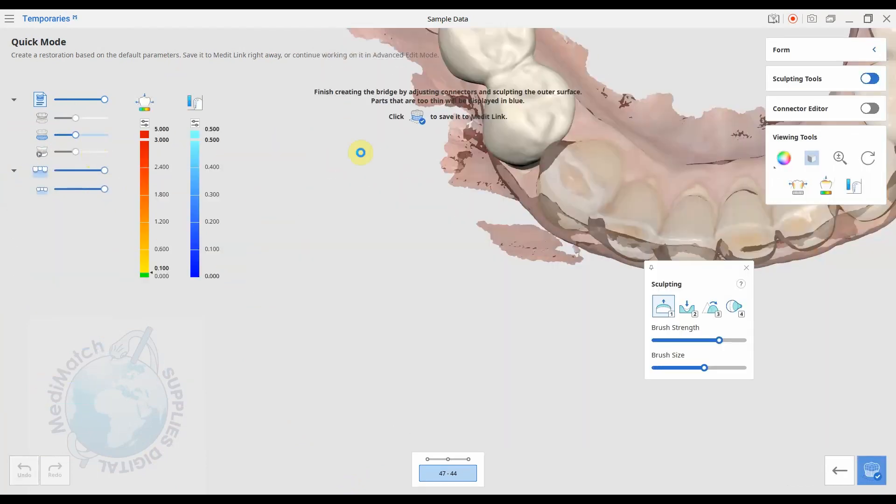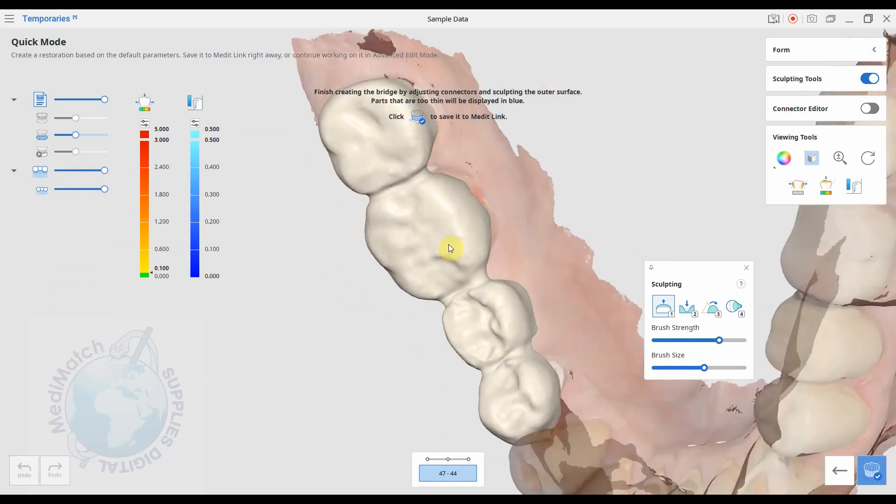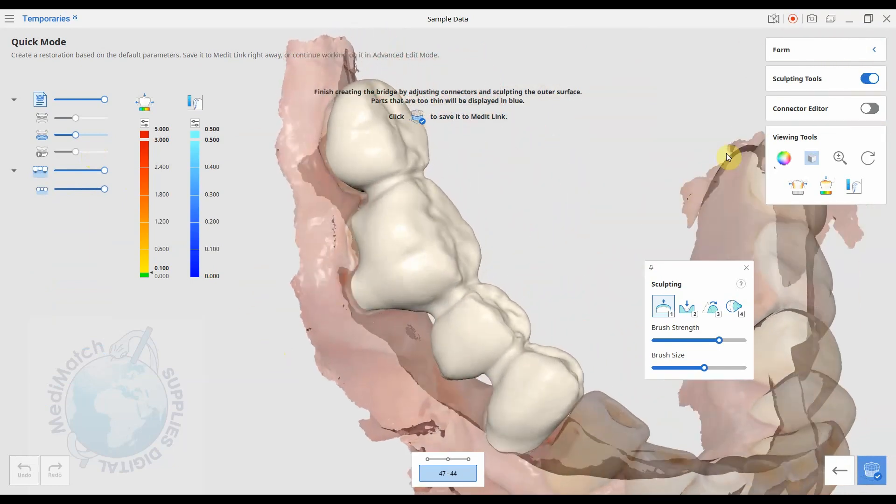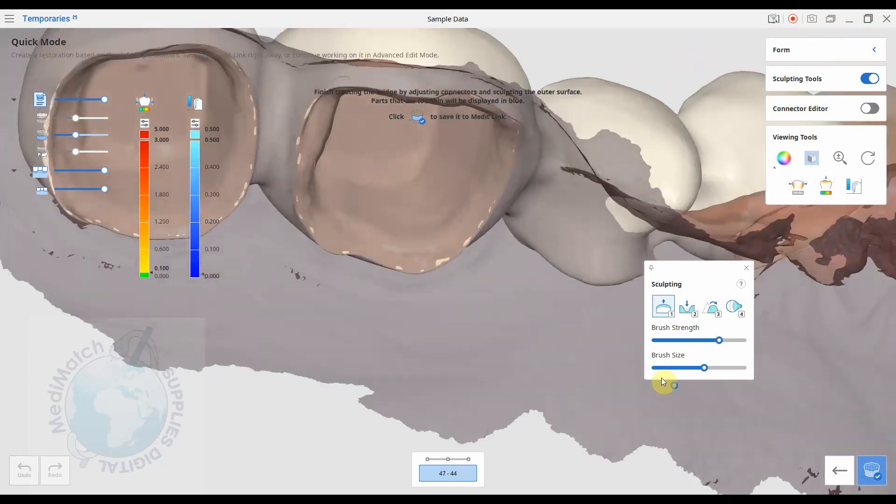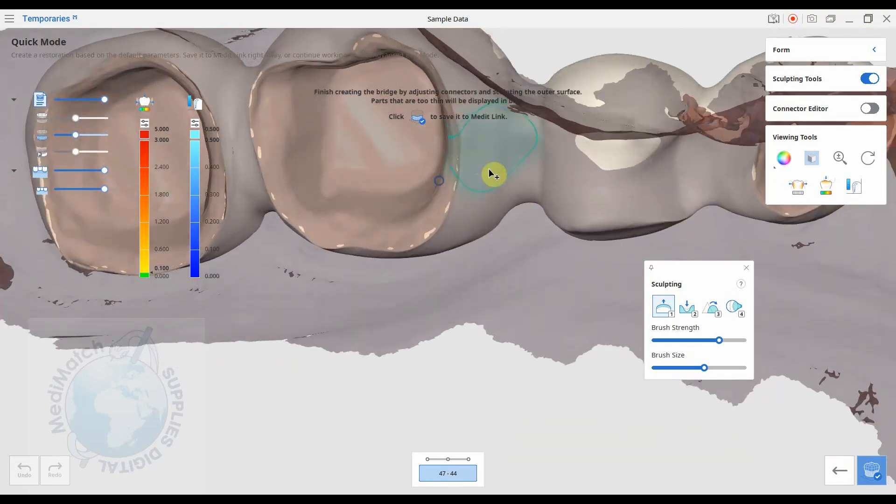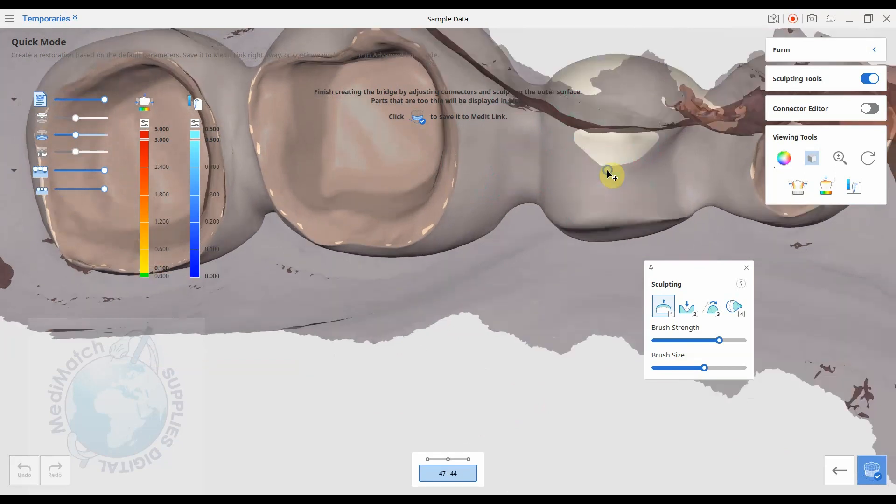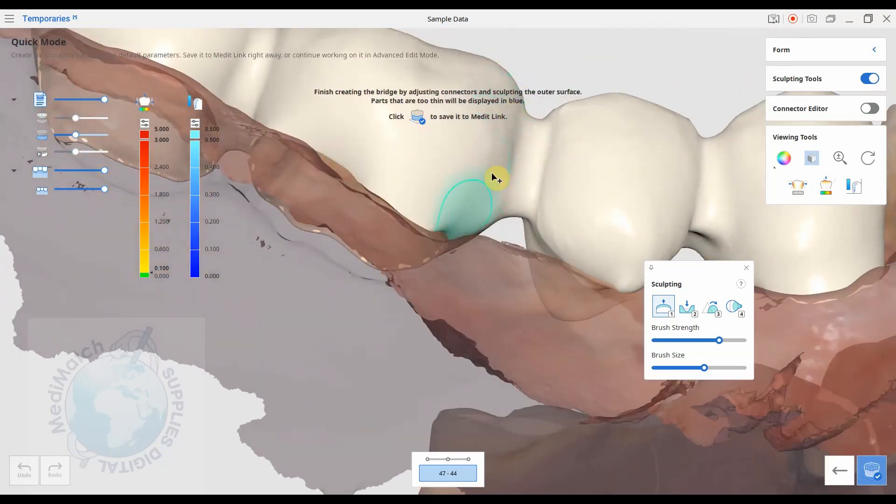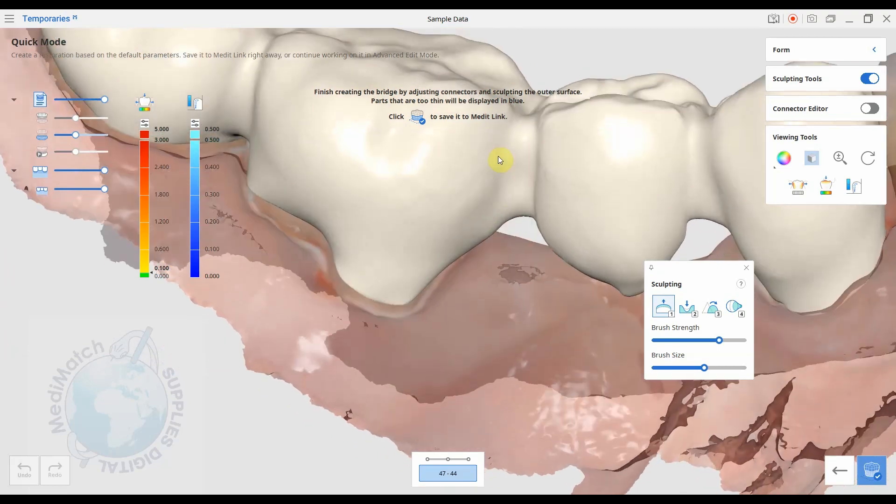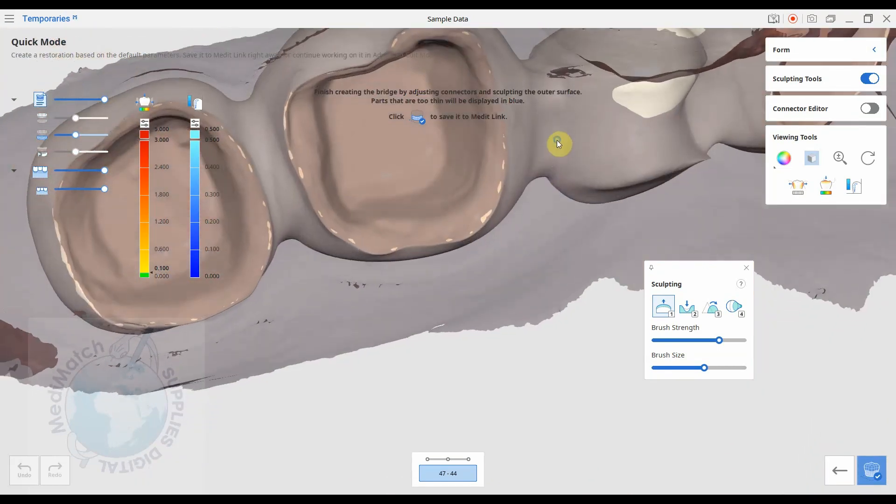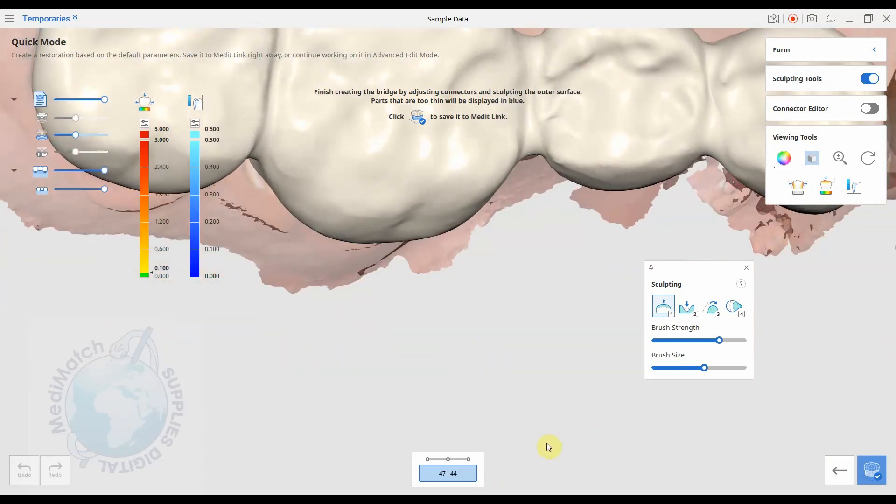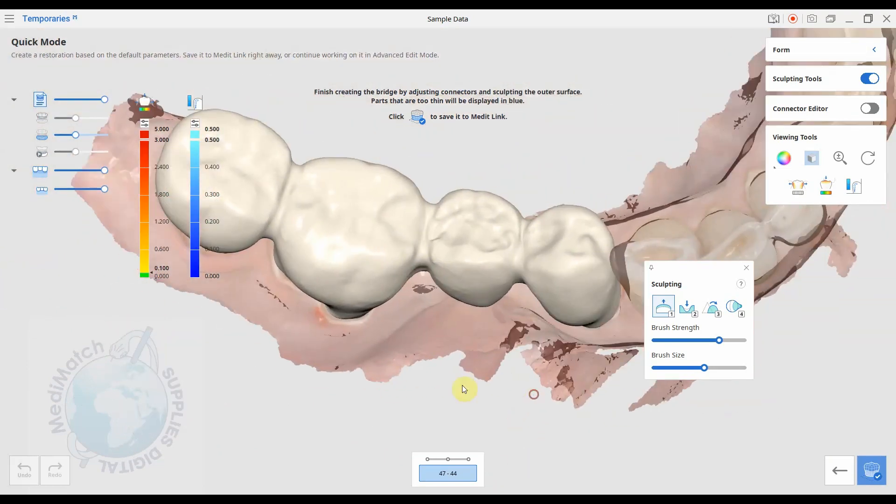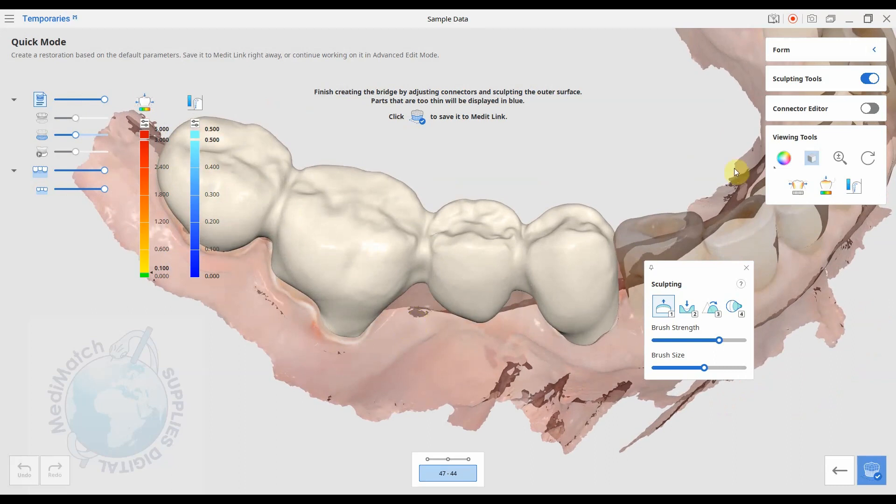And it will create our bridge based on all that information we've just given it. It'll put our connectors in there for us and it's automatically adapted this to the soft tissues. You'll sometimes see this breaking through slightly. You've got to remember that these rendered images are you know, just a micron or so thick or whatever. There's no thickness to them really. So when you see them poking through, it's not necessarily that they're actually really coming through the data, it's just that they're matched up very closely. Okay, so that's really good. I'm happy with that. Again at this stage we can make any adjustments if we want to. We can also go and edit the connectors as well here. So we can grab the nodes and we can move it around if you want to move it more lingually or buccally.